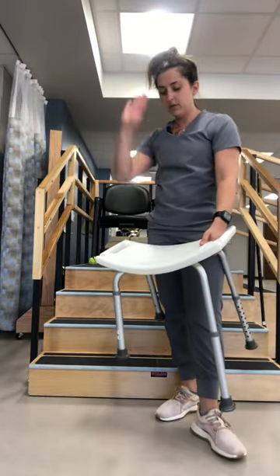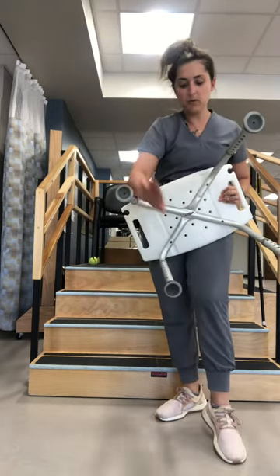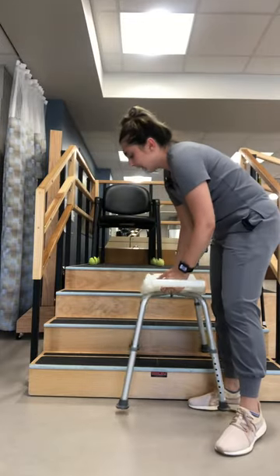First thing you're going to do is get a shower chair with no backing, just the seat. You're going to shorten the legs — both of them on one side — and lengthen them on the other side so that you have the height of a step.